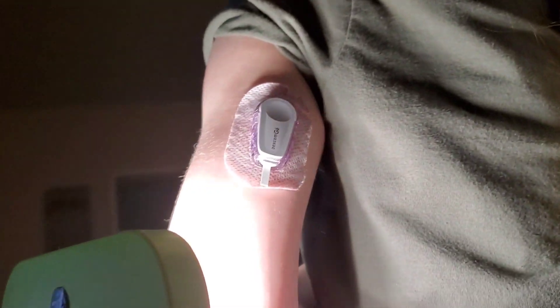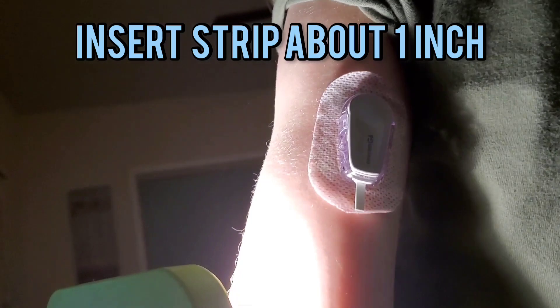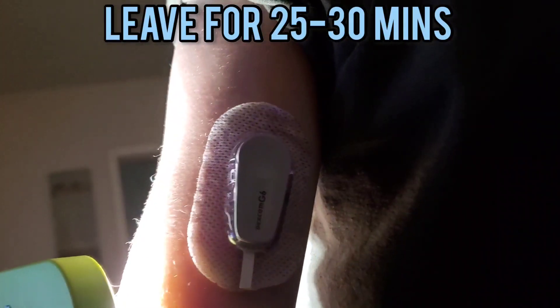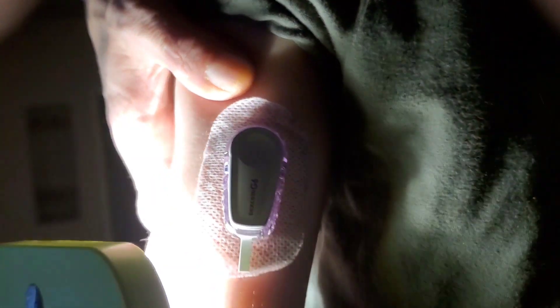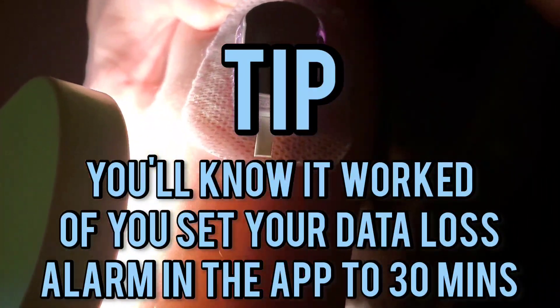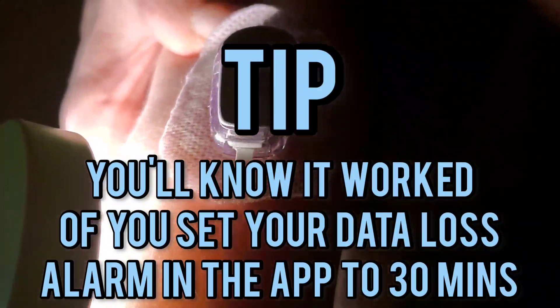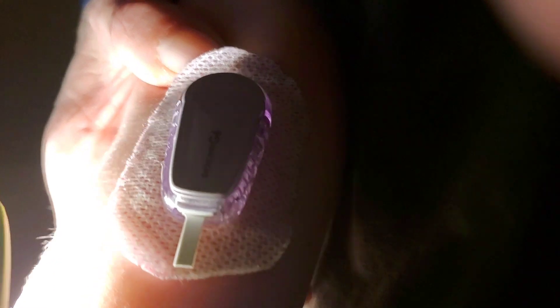Leave it like that for 25 to 30 minutes. Mind you, we've already turned off the sync function on the devices. Now, like a new toy at the toy store with that little plastic piece, it's disconnected the battery by separating the two terminals that touch each other normally. On the inside there are two rubber pieces that are the terminals, so you're going to leave it like this for 25 minutes.